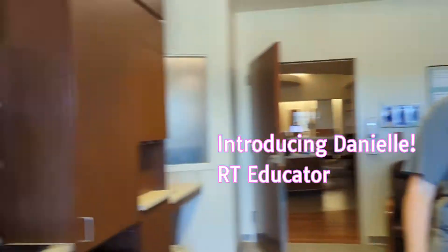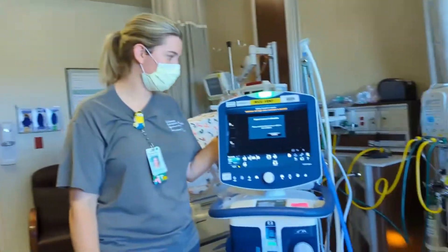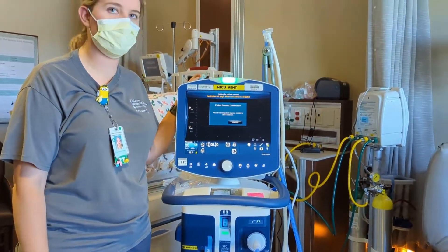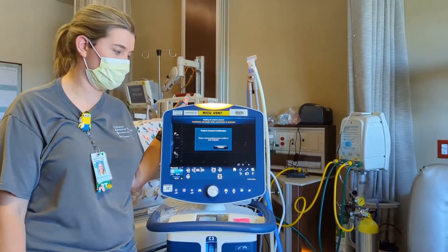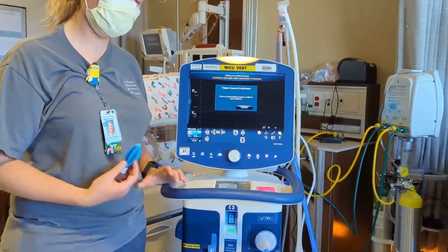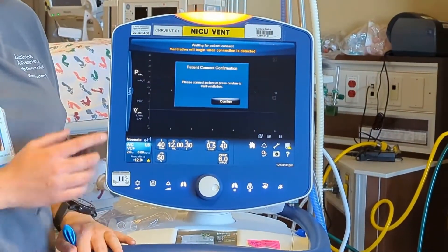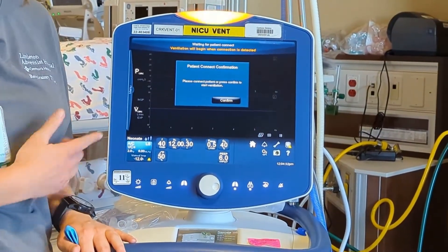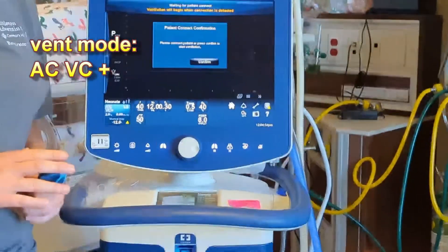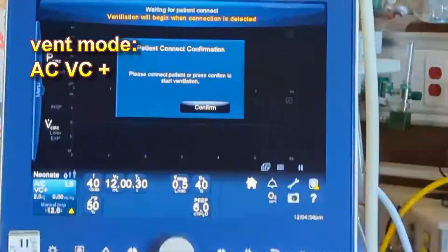This is Danielle. We're going to talk about the 980. This is the ventilator you're going to be using predominantly here in the NICU. The mode of ventilation that you're going to be using is called ACVC Plus. It's a volume controlled mode, but also assisted.